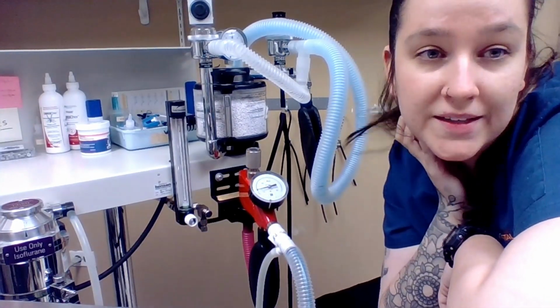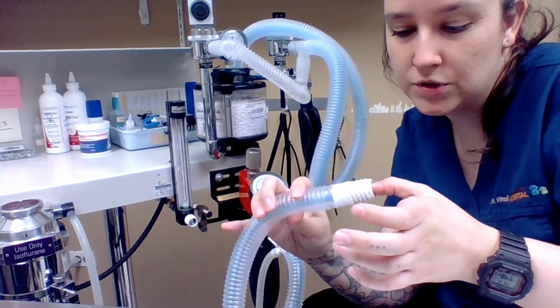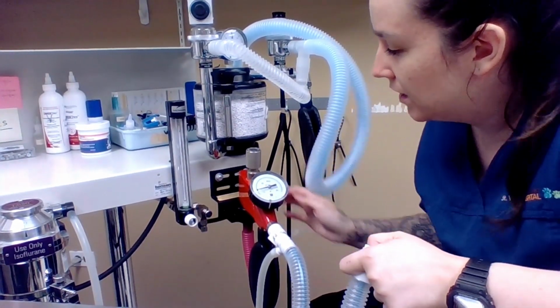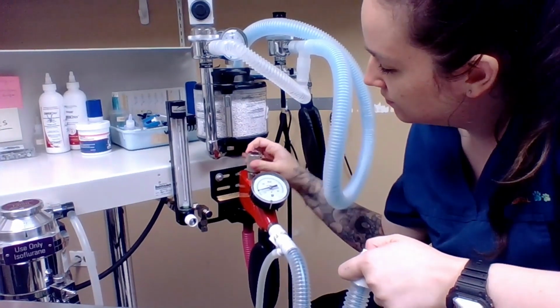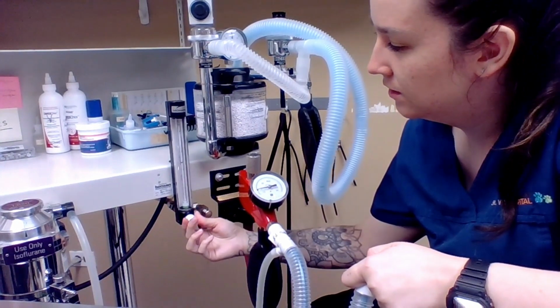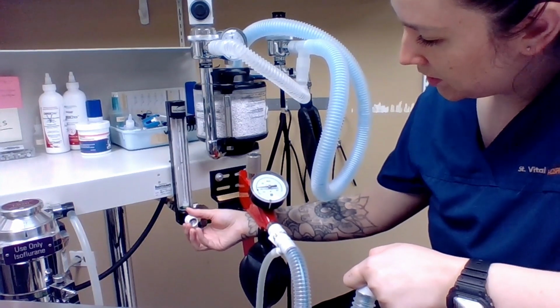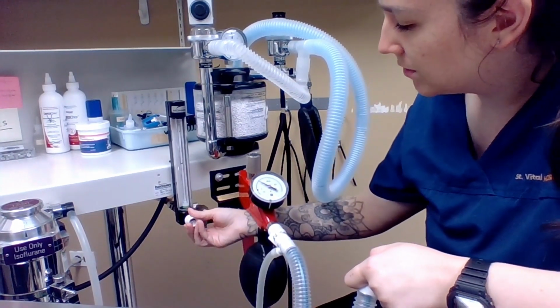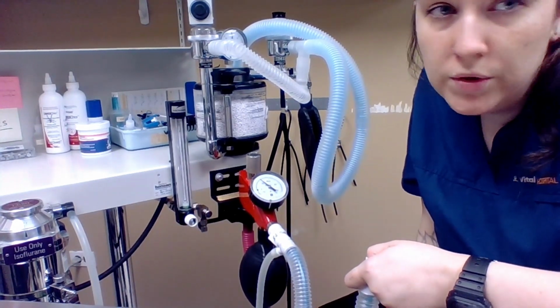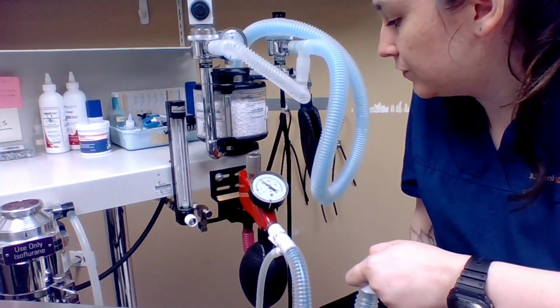Okay, so I'm going to be leak testing the Bain system, the non-rebreathing system. So to do that, I'm just going to secure my thumb in the end of the tube so that no air can leak around it. I'm going to close my pop-off valve, and then I'm going to turn my oxygen on, and my bag down here is filling up. And I'm going to turn my oxygen off once my pressure manometer hits about 20, so about there. And then I'm just going to hold and make sure that this maintains for about 15 seconds, and it is maintaining well.